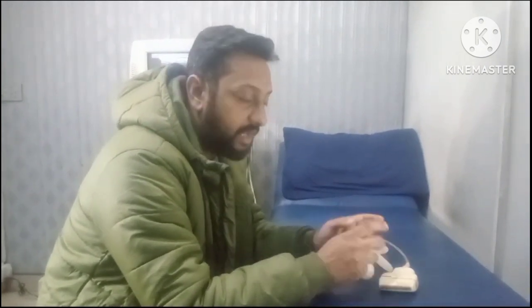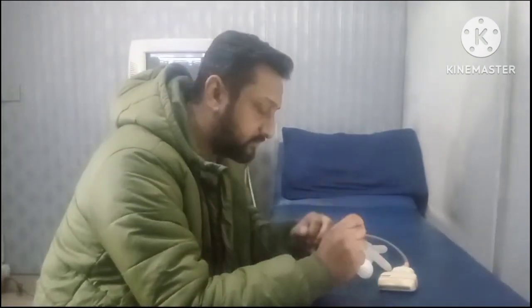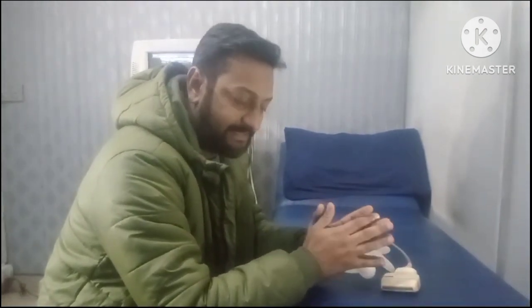In this video I am going to discuss how different tissues appear on ultrasound — how liquid appears, how soft tissue appears, how gas appears, and how calcified structures appear on ultrasound. To understand this, first you have to know a bit about the basics of ultrasound physics.